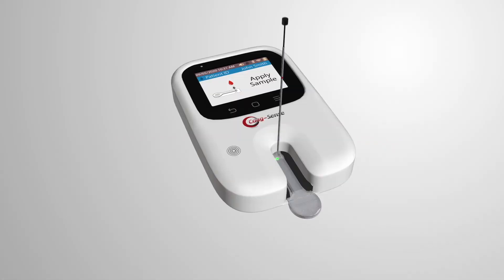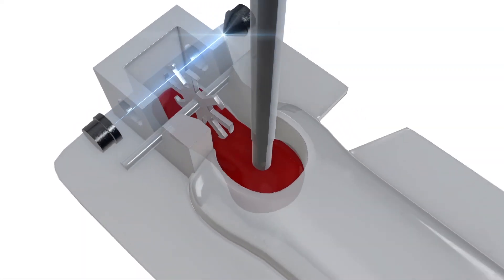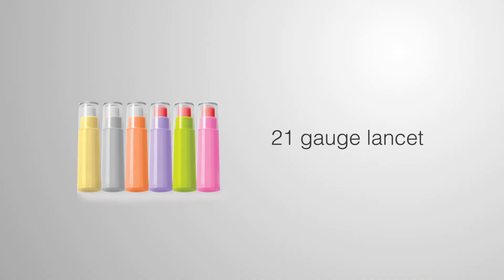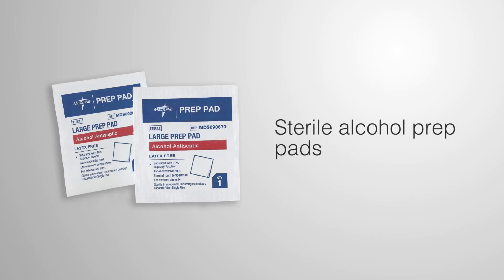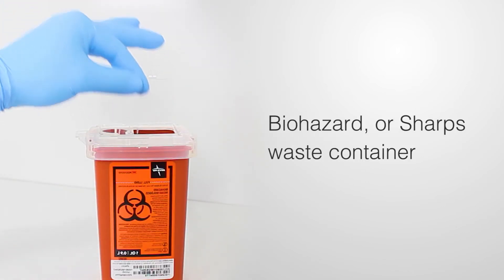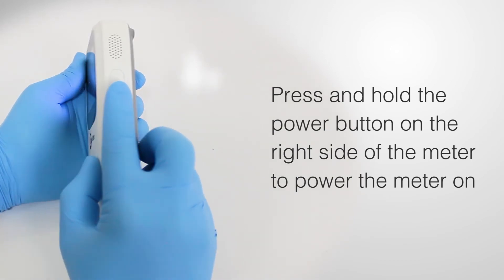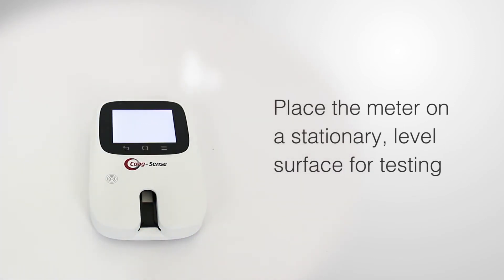This video provides a brief overview of how to perform a PT-INR test. Make sure you have all the supplies needed before you start, including a 21-gauge lancet, sample transfer tubes, sterile alcohol prep pads, gauze square, and a biohazard or sharps waste container. To begin, press and hold the power button on the right side of the meter to power it on. Place the meter on a stationary, level surface for testing.